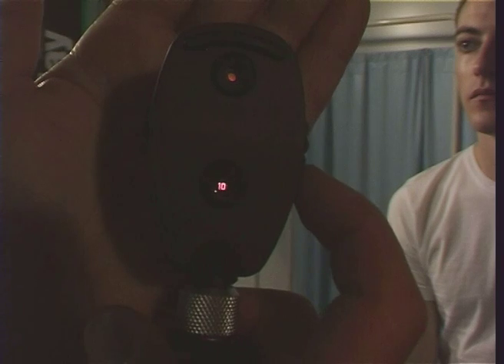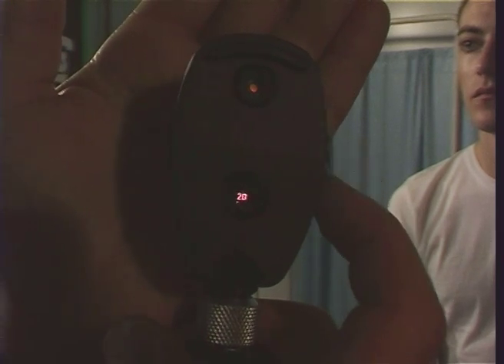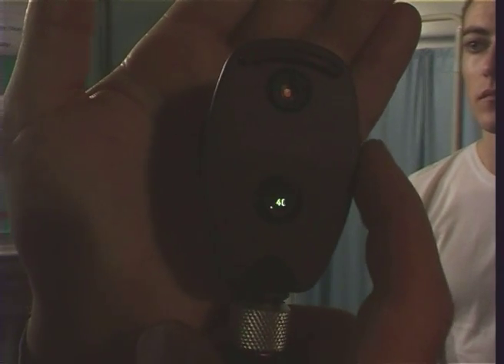In addition to single diopter steps, most ophthalmoscopes have a dial which enables you to change by plus or minus 10 diopters in a single step.